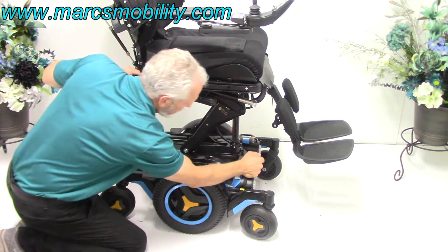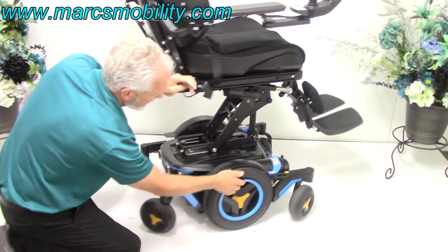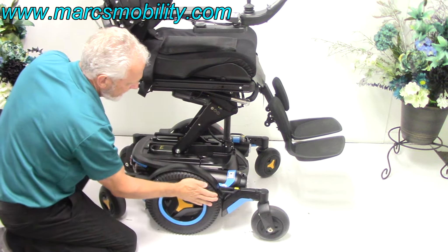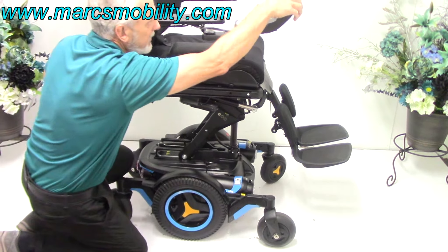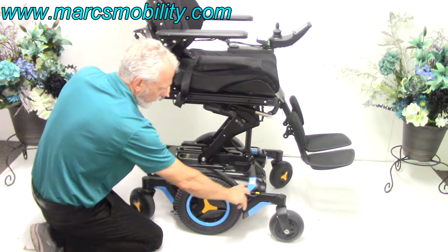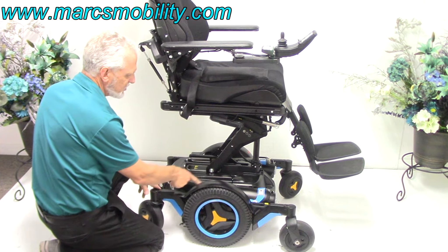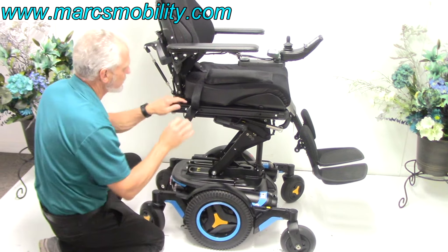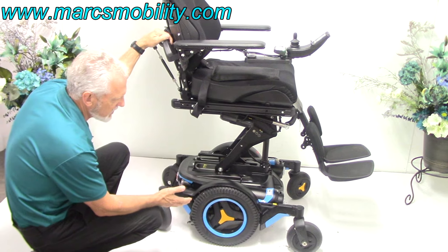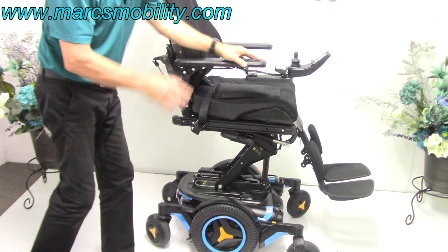On the M3s, the motors are facing forward and there's a lever on top of each motor. If I push the lever inward it unlocks the wheel. You would do both motors — push it back and you're in gear, then turn the power back on. You've got anchor points here for hooking up the chair, and the suspension is fantastic. These are top-of-the-line Swedish-made power chairs — Permobil is synonymous with quality.